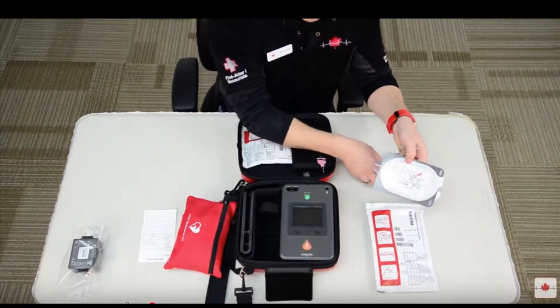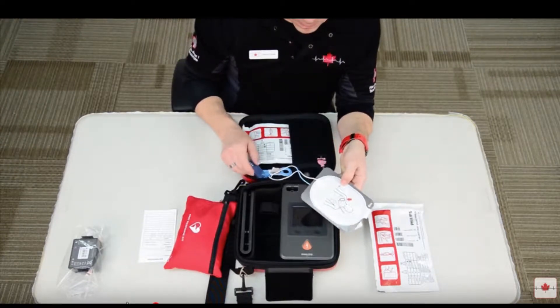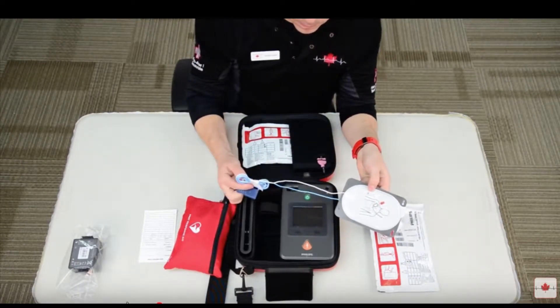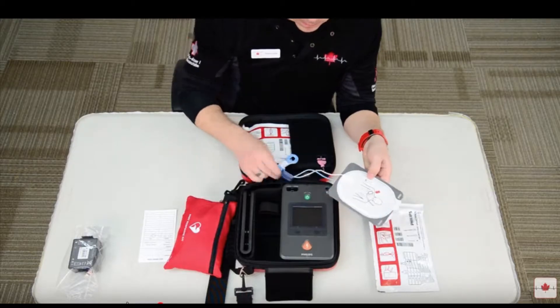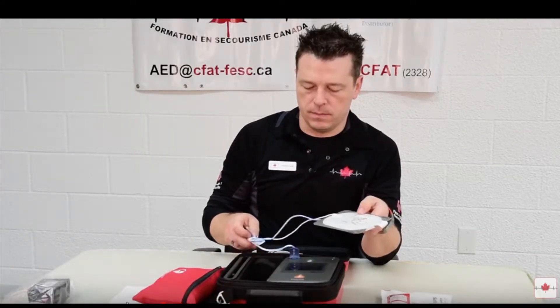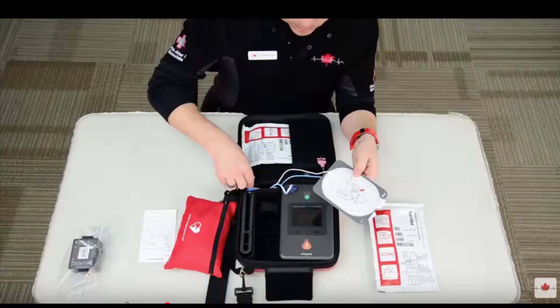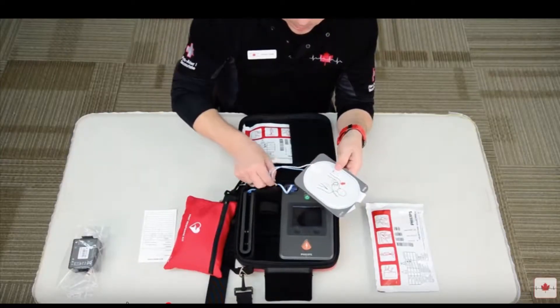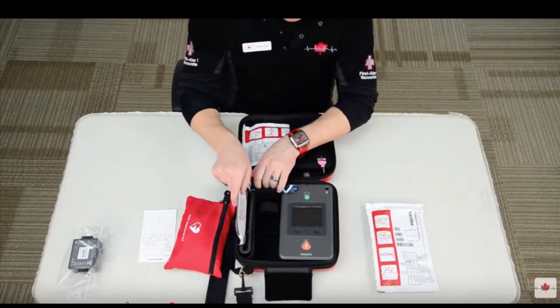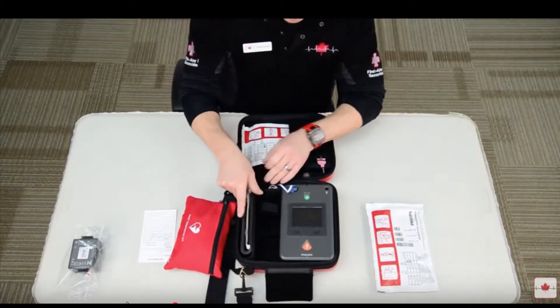Open the packaging, take out the electrode pads, and ensure you don't remove the paper from the spiraled cable. Lastly, plug in the electrode pads cable into the AED. Place the new set of electrode pads into the pads compartment found on the left side of the carry case.